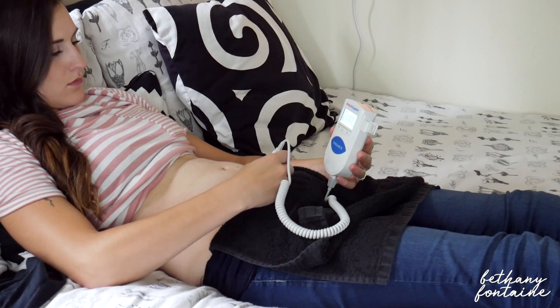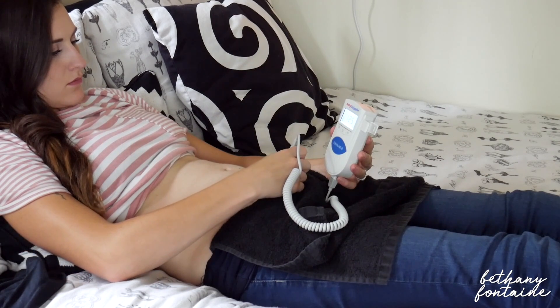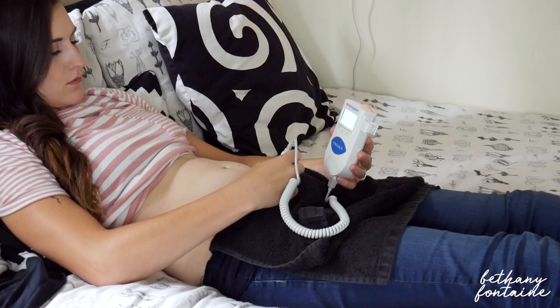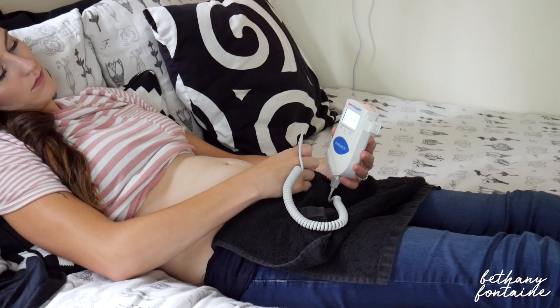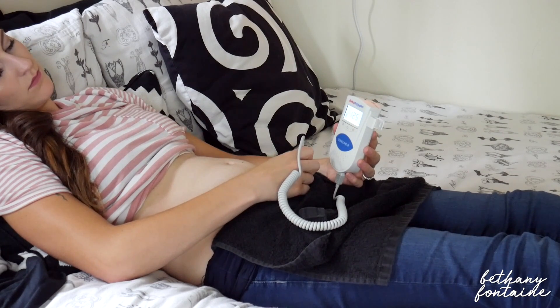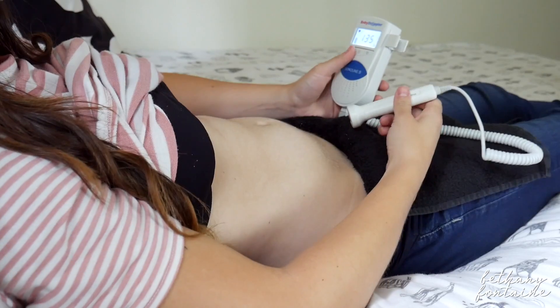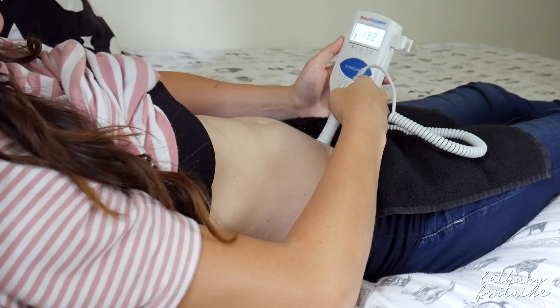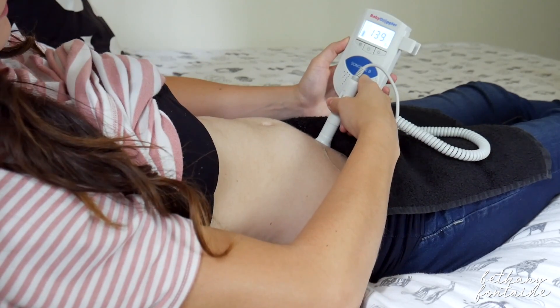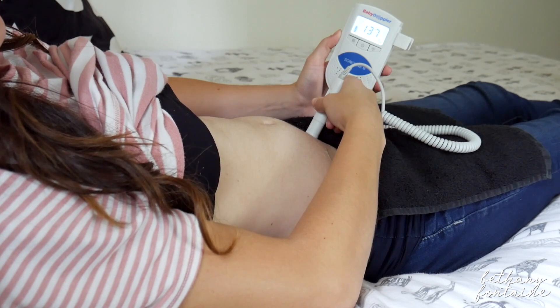Make sure you're comfortable and laying down. I like to put a towel in my jeans or whatever pants I'm wearing so that I don't get any of the ultrasound gel on my clothes, because it definitely happens — and then it's just an easy cleanup afterward. You want to turn on your fetal Doppler, put the probe to your belly. I'm about 16 weeks, so my uterus has come above my pubic bone. If you are earlier in your pregnancy, go a little bit lower, just above your pubic bone. Take the probe and move around your belly in a slow manner, because if you go too fast you might miss it.